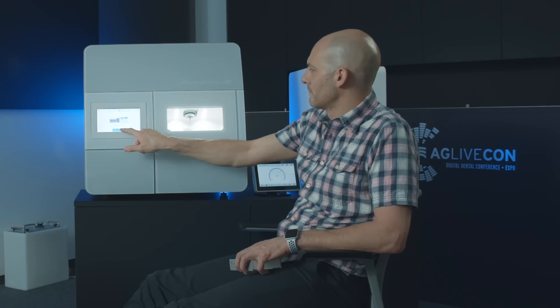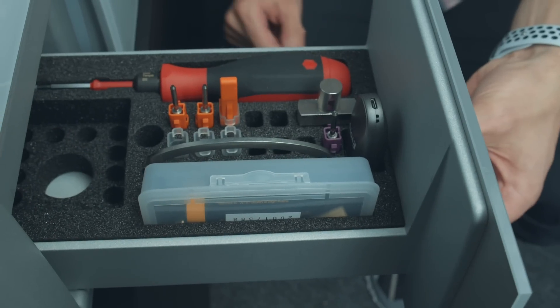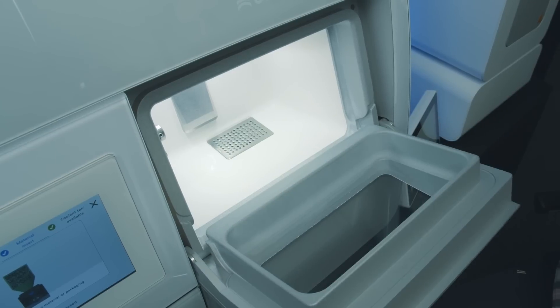The machine has an HMI touch display with which the machine can be controlled very easily. In order to ensure that you have the correct color and correct size of the block chosen, there is a code on the packaging that will be scanned with a very small scanner.